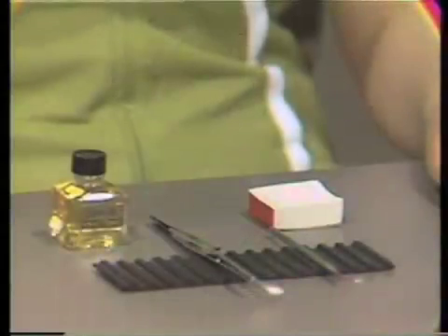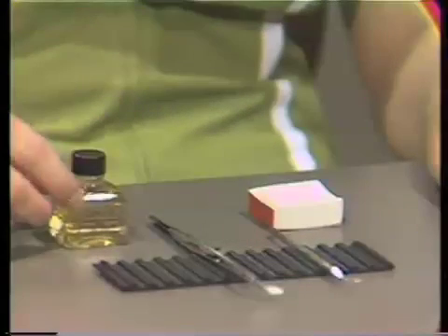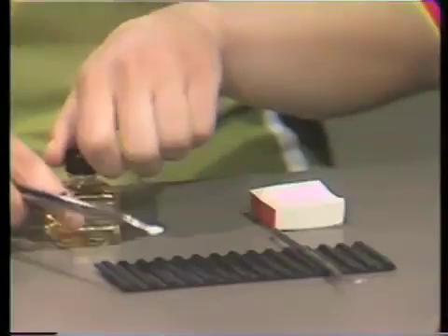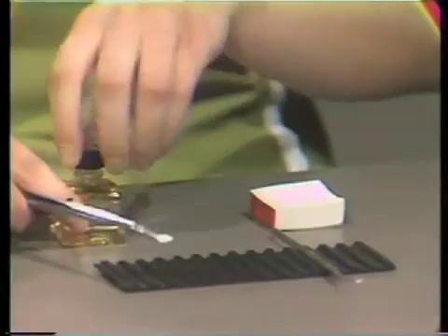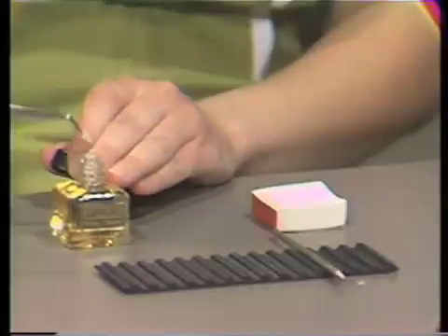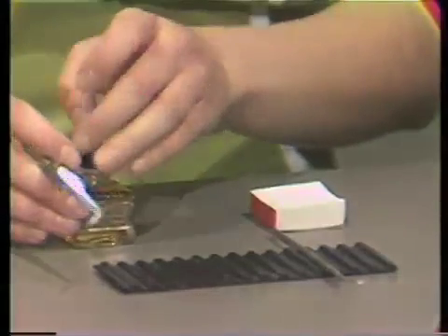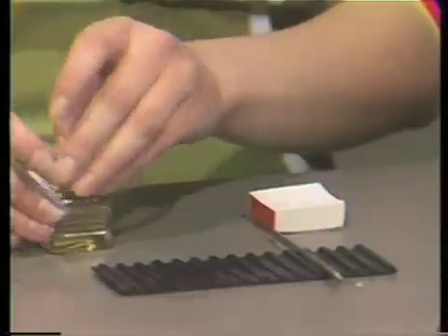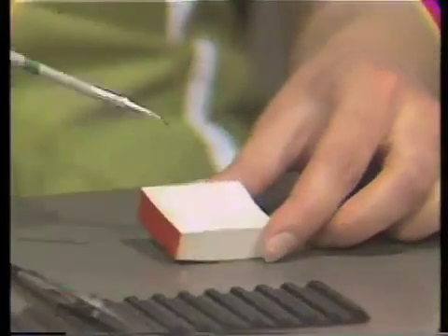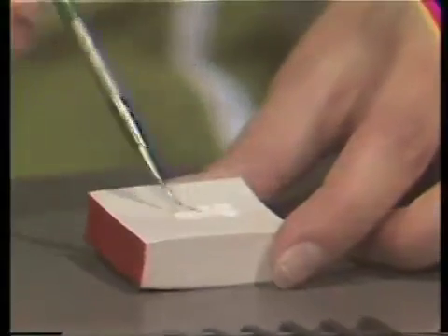Cavity liners are normally found in two different forms. Liquid, which is normally some form of cavity varnish. And cream-like form, which usually consists of two types of material, a catalyst and a base.